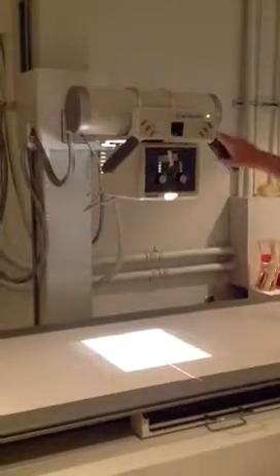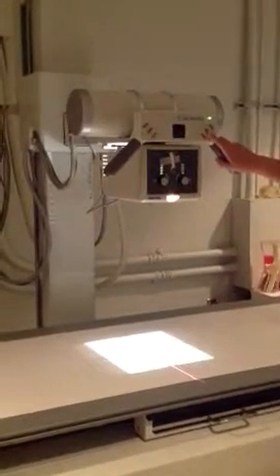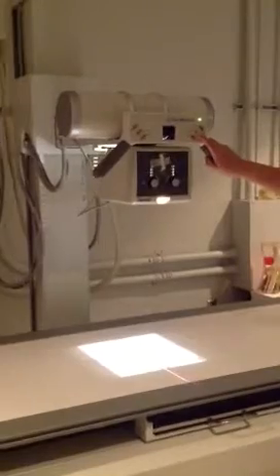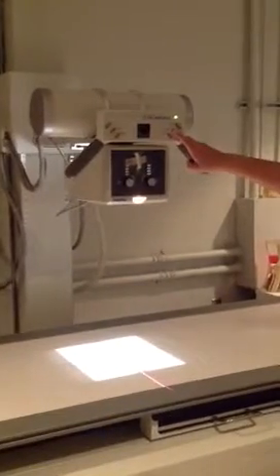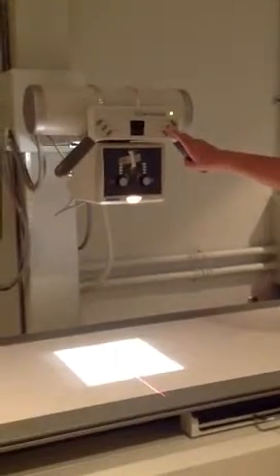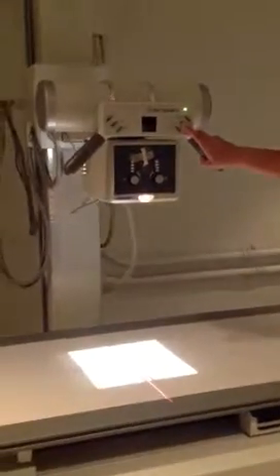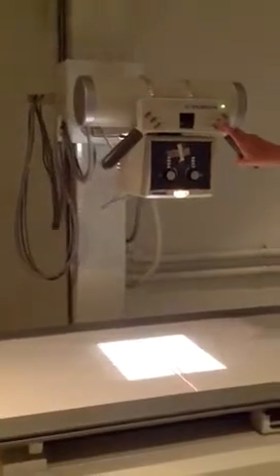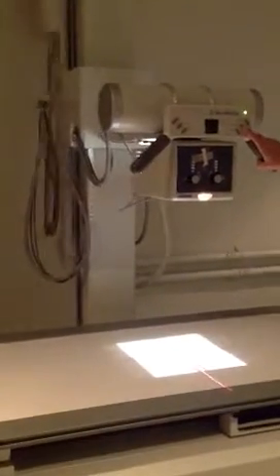The next button we're going to talk about is the longitudinal button. This button allows us to move the x-ray tube up towards the head end of the table or down towards the foot end of the table.